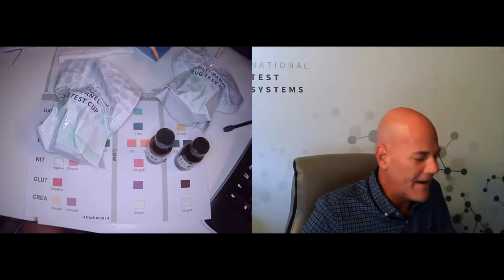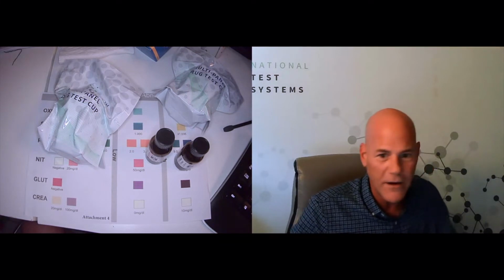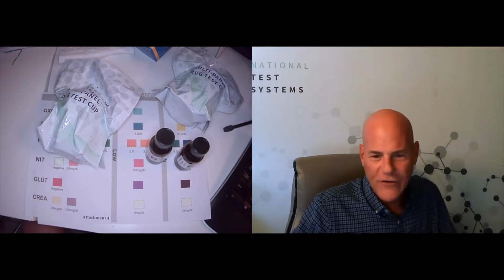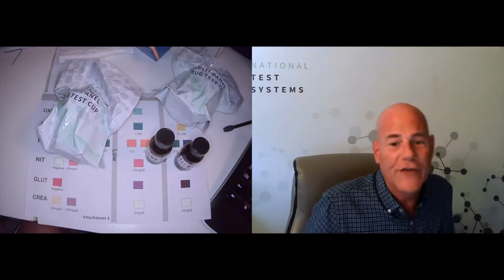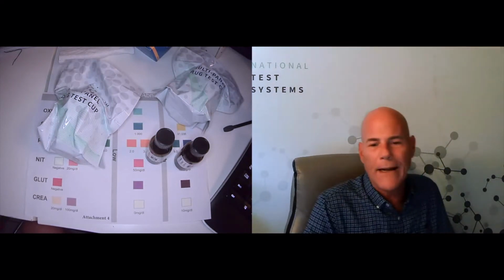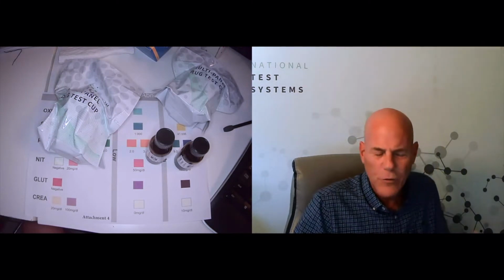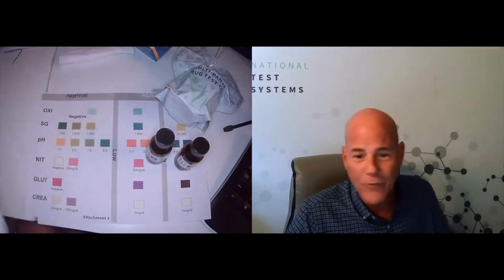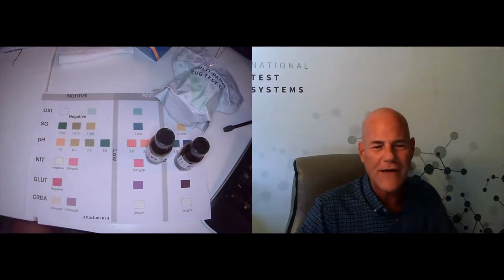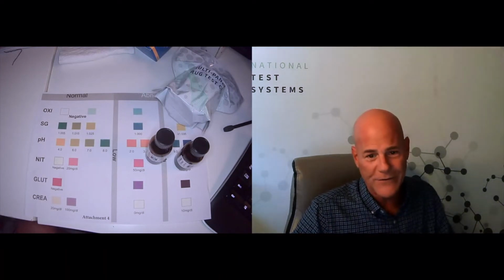So keep that in mind. You're not going to get it exact. Really, you're looking to see if it's within a hair's breadth of the color that you're hoping it's going to be. It's the nature of an instant test. It's what we call semi-quantitative. Same thing with alcohol tests, which give you a level range. You just won't get that fancy printout. We can get that from the lab for you, of course, but it kind of defeats the purpose of having an on-site test and knowing right away whether or not you're using a valid specimen.